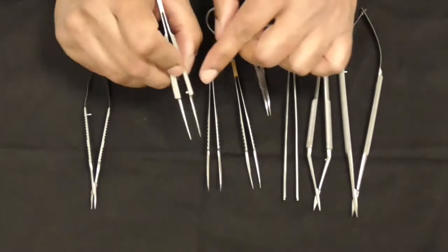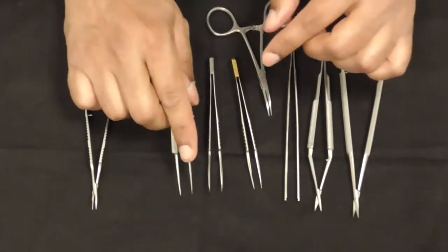This is another pair of 5s. You can see it's got a bit of a rounded handle, and that's for surgical preference.